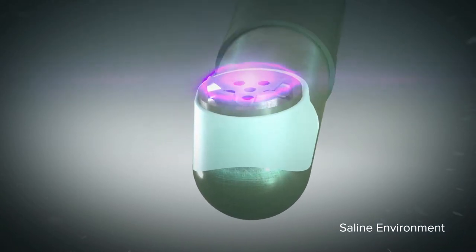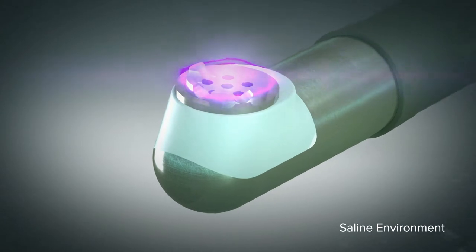These conditions ablate tissue only at the tip of the device at relatively low temperatures.